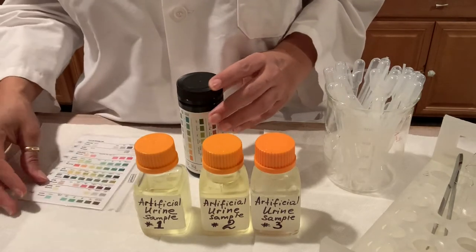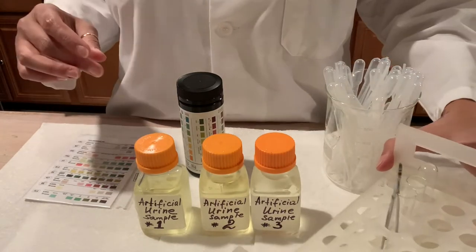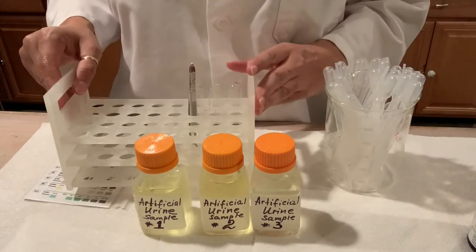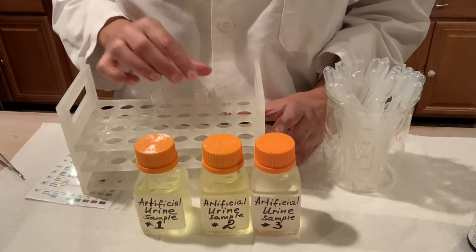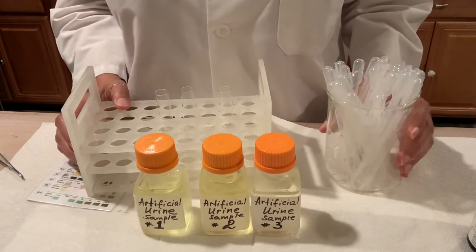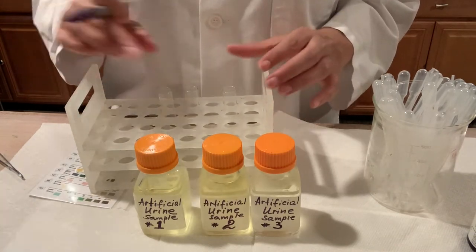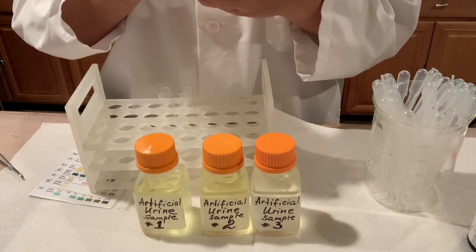Since we have three samples, we need three tubes. We need to label each tube according to our urine samples so we know which sample we're testing. That's really an important step, otherwise you will give the patient the exam results of someone else's, and that's really not good. So we have sample one, two, and three, and we're going to label our tubes accordingly.